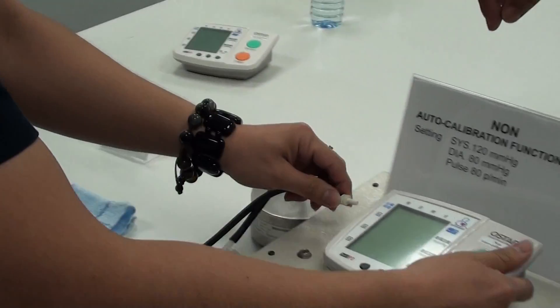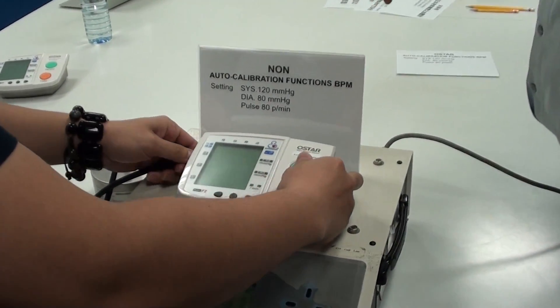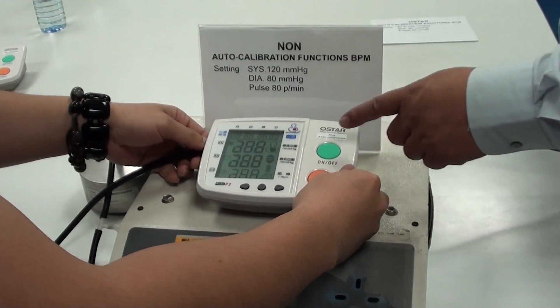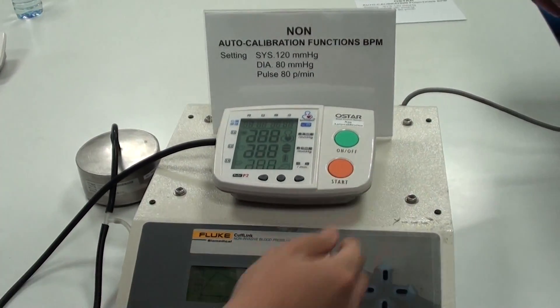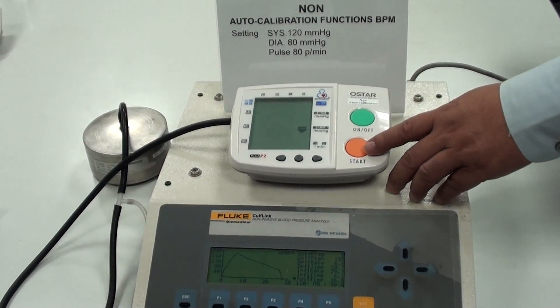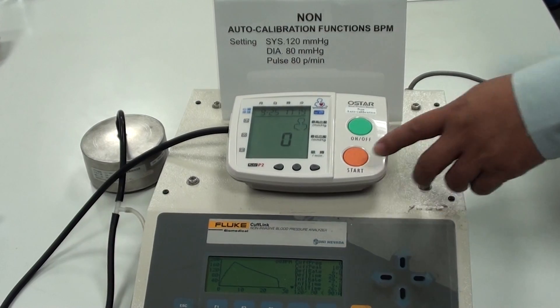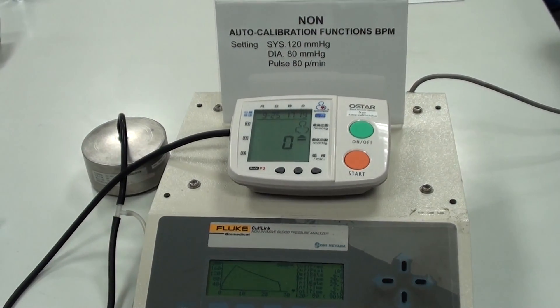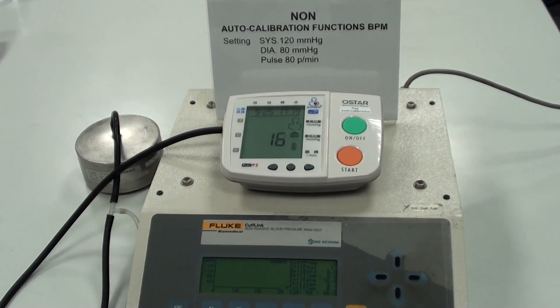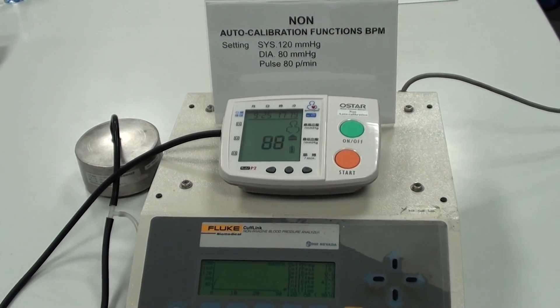We put the rubber and we test it again. Okay, we turn on and press.